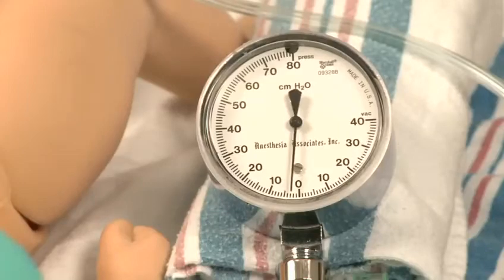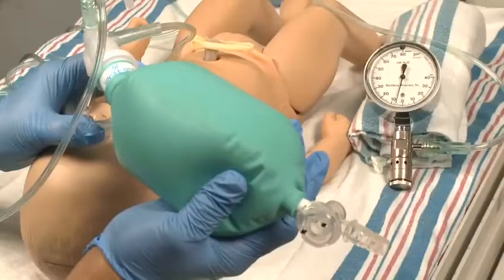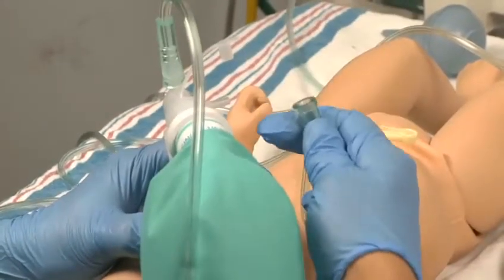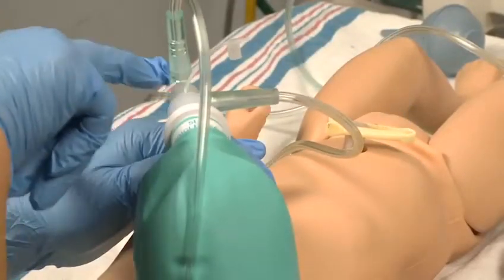This end expiratory pressure is called PEEP when the newborn is being ventilated, and CPAP when the newborn is breathing spontaneously. The pressure gauge may be attached here, or the gauge may be built into the bag, positioned between the patient outlet and the neck of the bag.